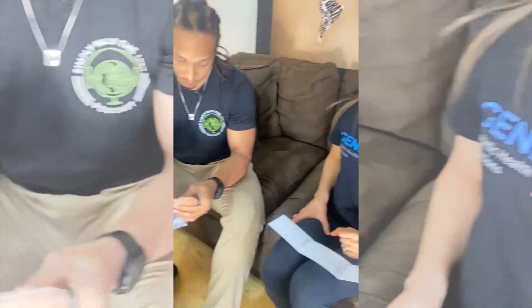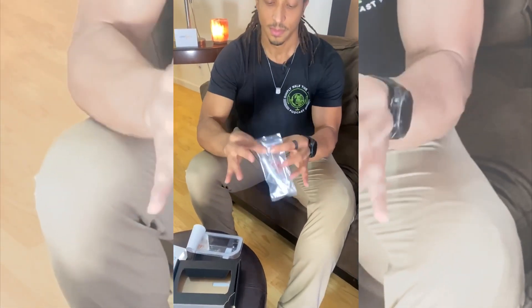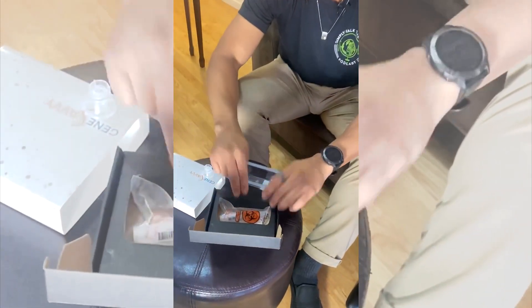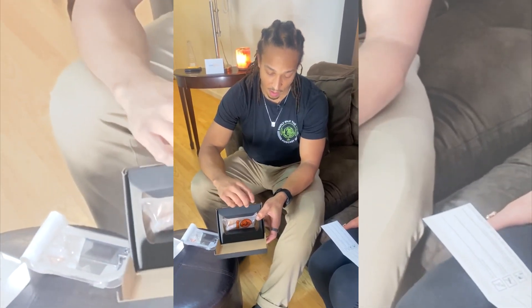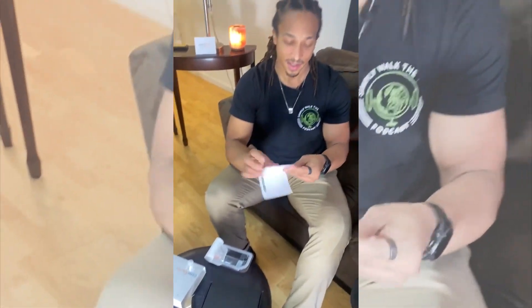You've got two steps left. You know what to do. Easy peasy, guys and gals. This goes back in the box. Seal it. Keep all your genes to yourself. This goes back in the box. We've got our adhesive here on the front, we're going to peel that off. We're sealing it. Sealed. And look at that! We've got the shipping label already prepared. This goes on the front and we send it off. Josh is about to get gene savvy. Thank you very much. And that's it. Easy peasy.